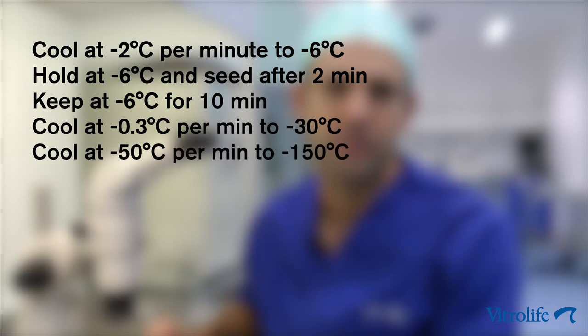Cool the straw then at a rate of minus 50 degrees Celsius per minute to minus 150 degrees Celsius.